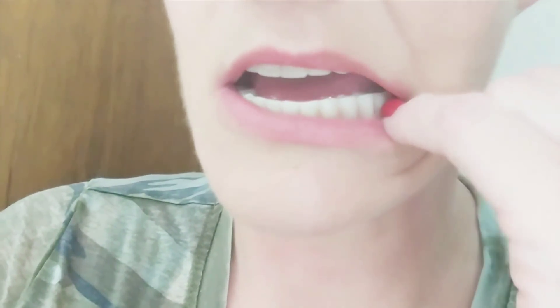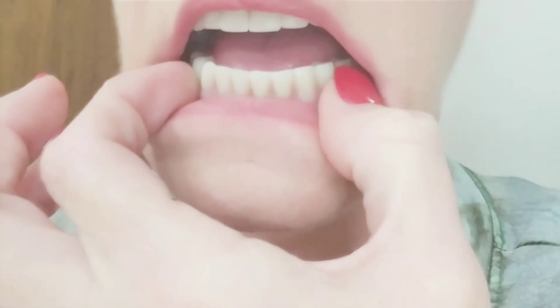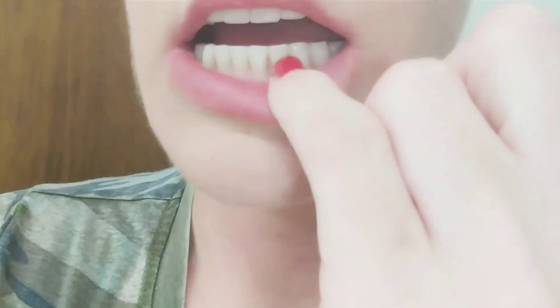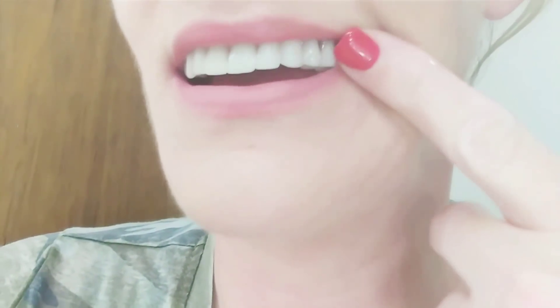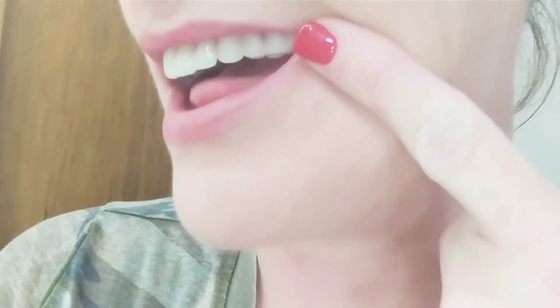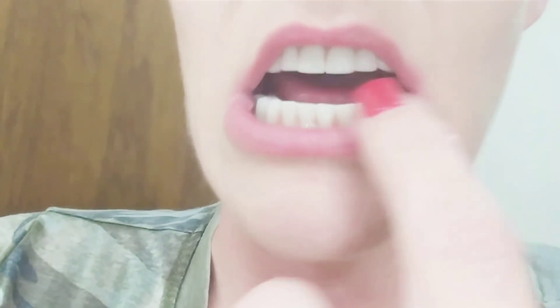As I stated in my previous video, I never got my 12-year molar so I am short on teeth. See how the teeth are worn — the teeth should be shaped like these, they should be sharp. Not too sharp or they're going to cut your tongue, but sharp enough that they'll cut your food when you're trying to eat.